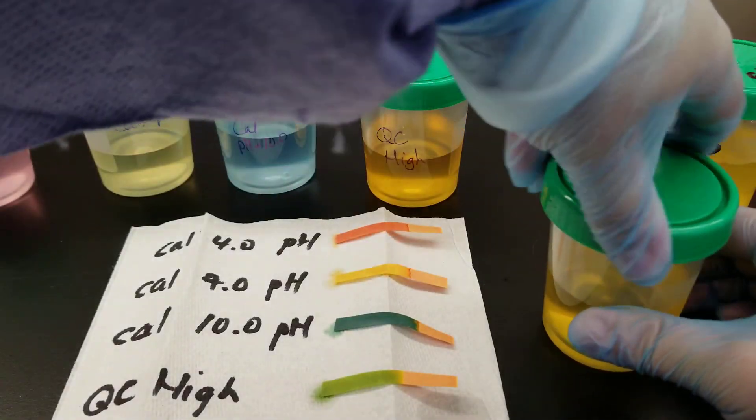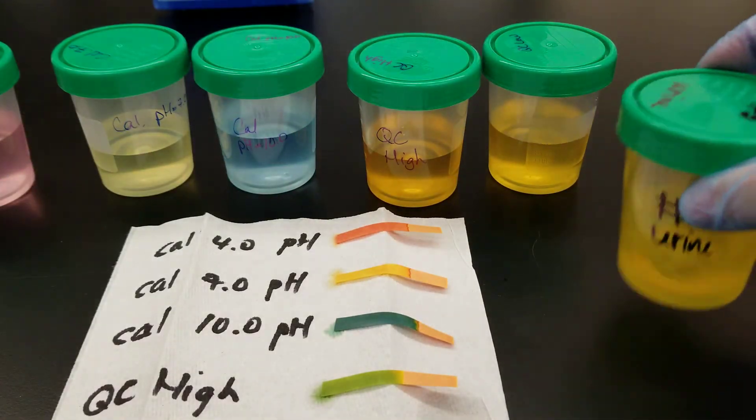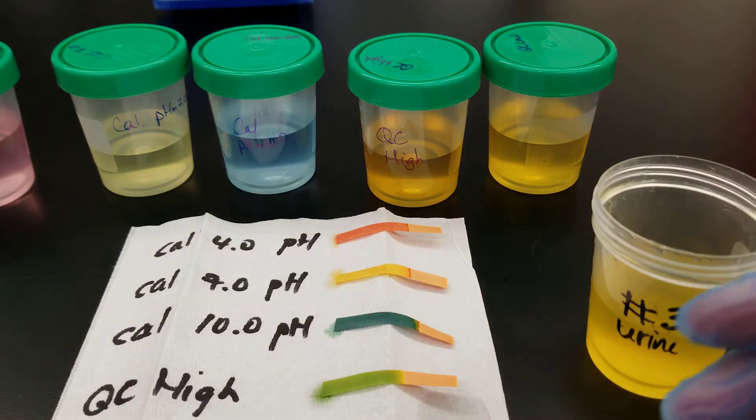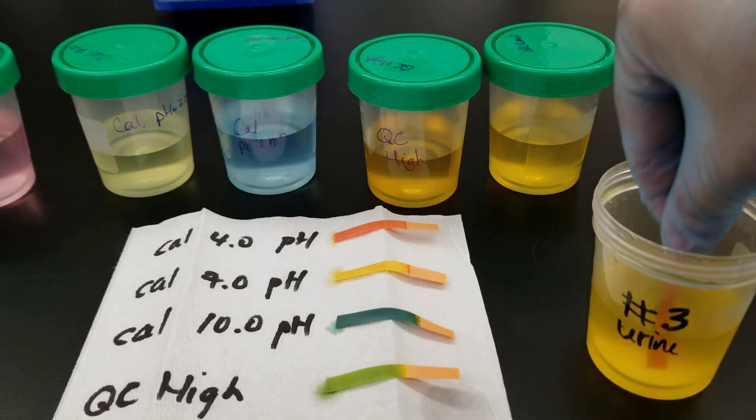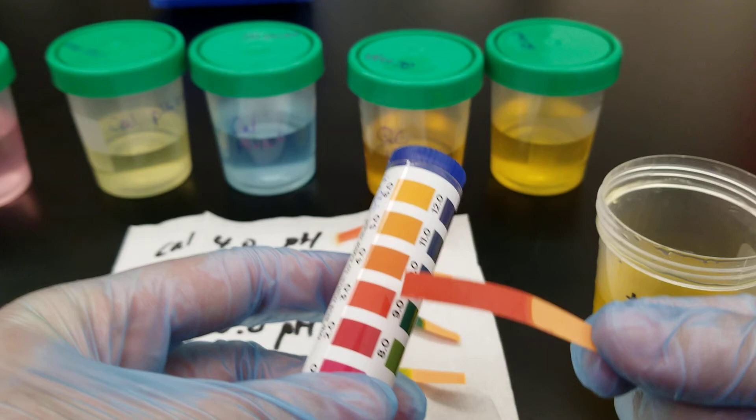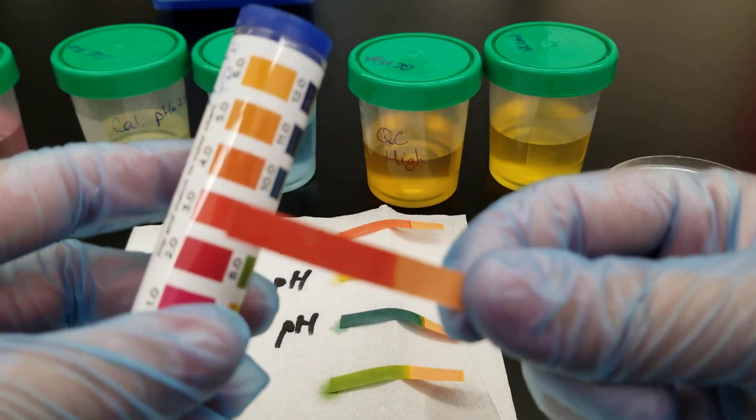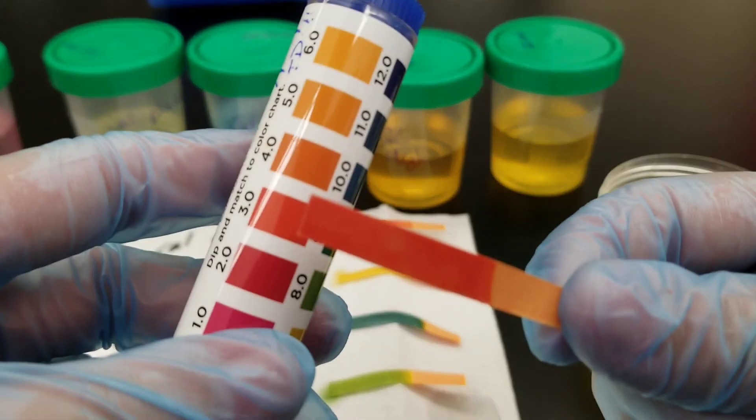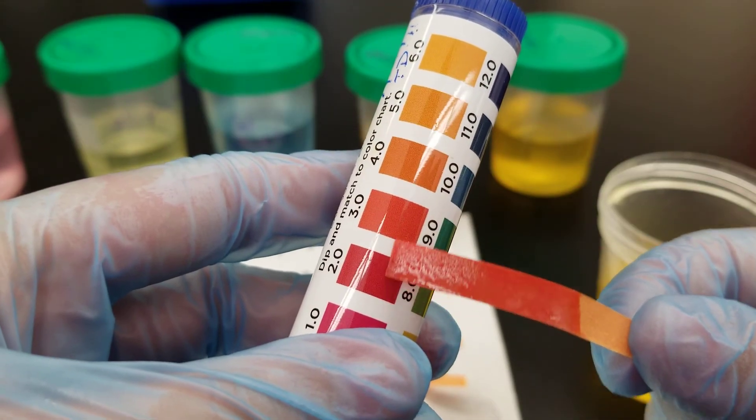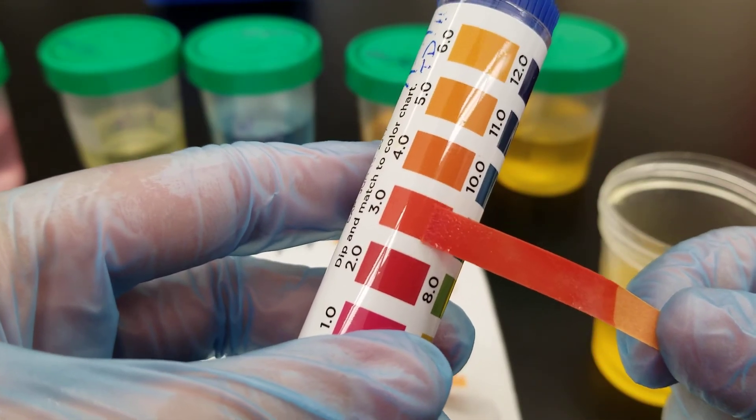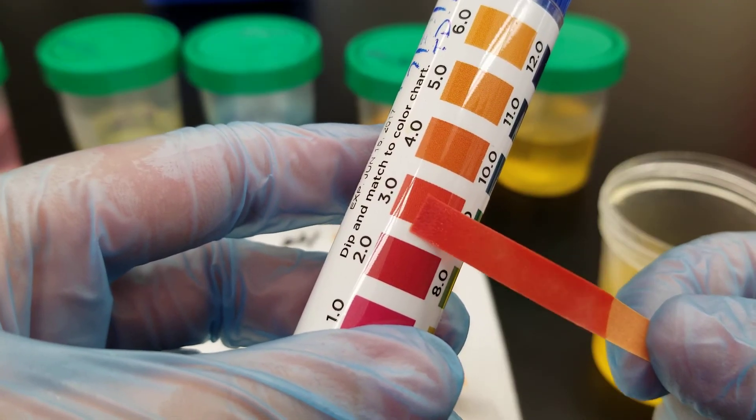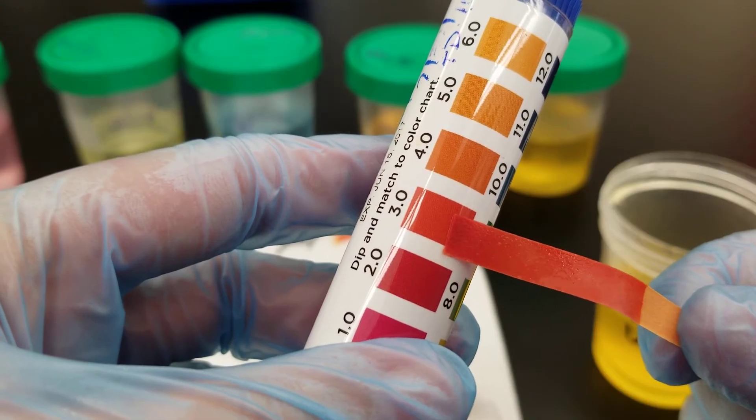Now we're going to do the specimen. Looking at the specimen, it looks like a 3. That's not picking up very well. There we go on the camera. Looks like a 3.